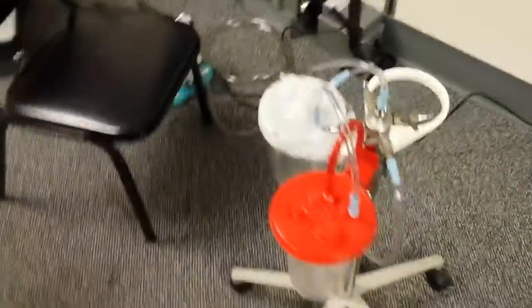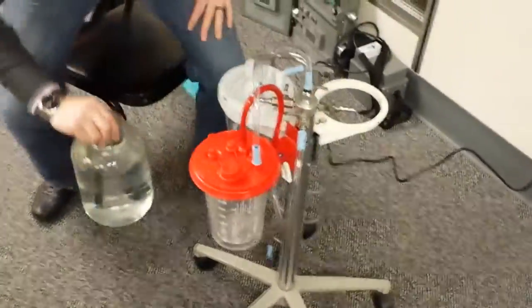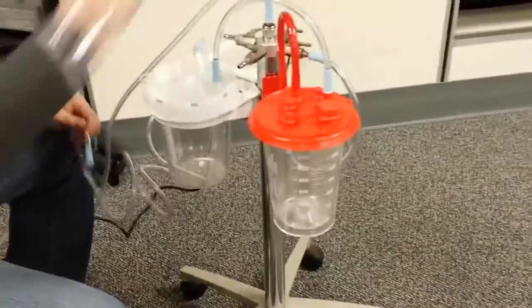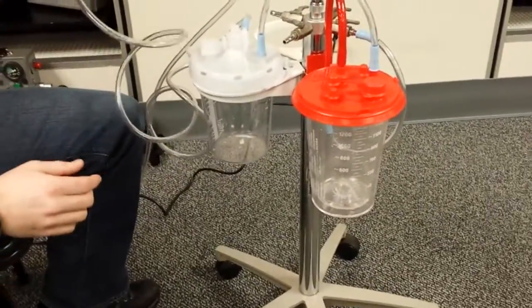And I'll demonstrate how this works then. We got everything hooked up. I'm just demonstrating with water here, but it's the same. What you're going to do is then open your vacuum system. Check to make sure you have vacuum.